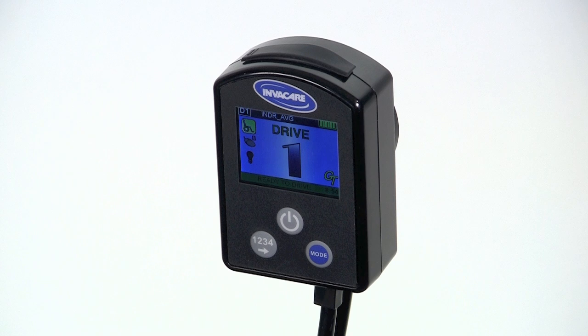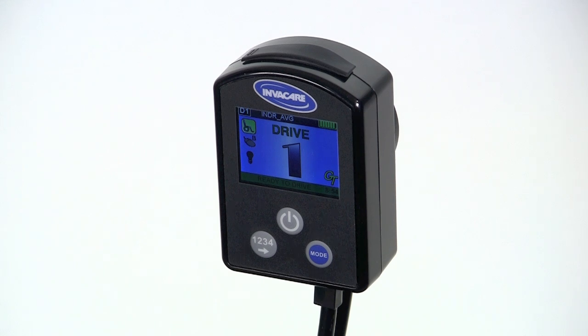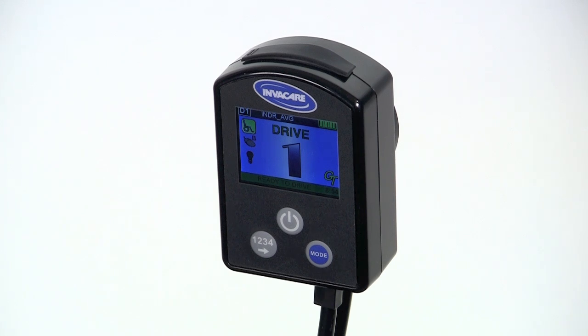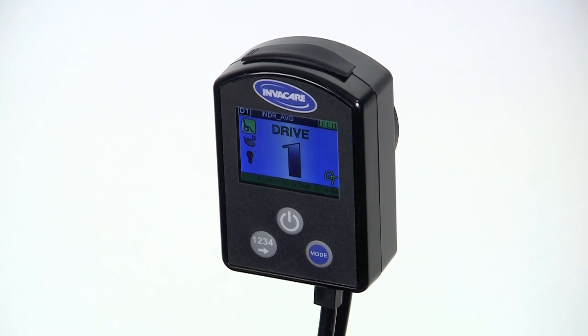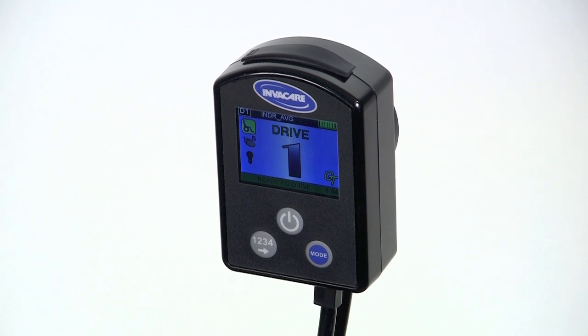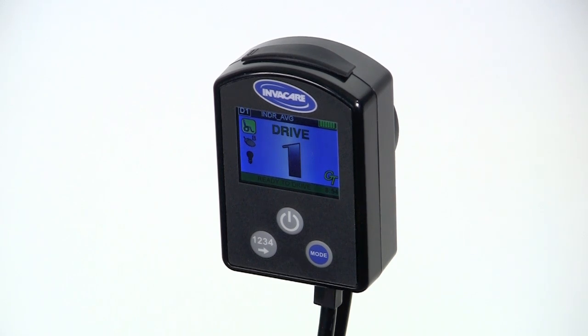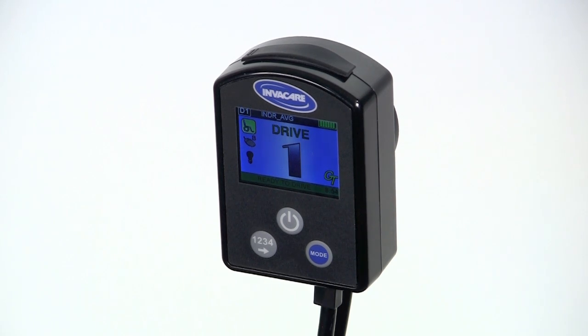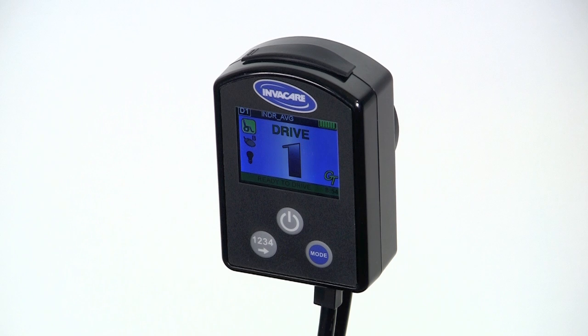If you've watched the tutorial called Updating Software on your Invacare Mark VI Professional Card, then you know how easy it is to upgrade to the latest Mark VI software just by logging into your Invacare Pro account on invacare.com.